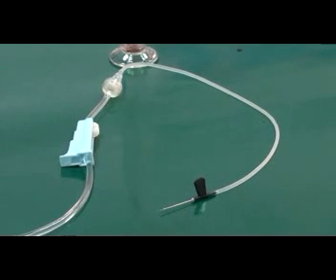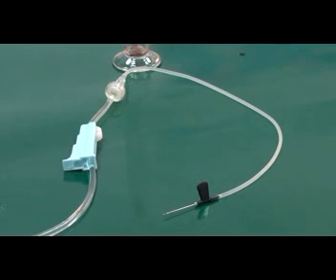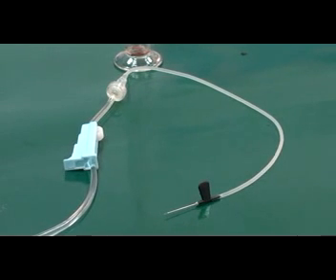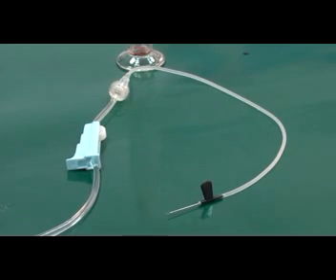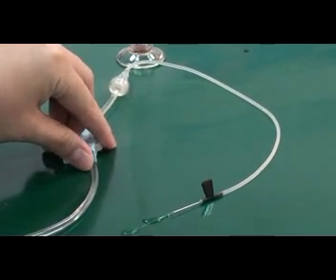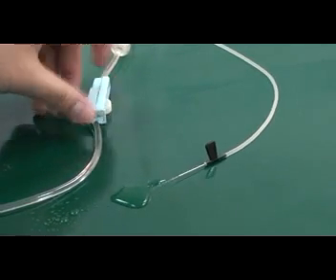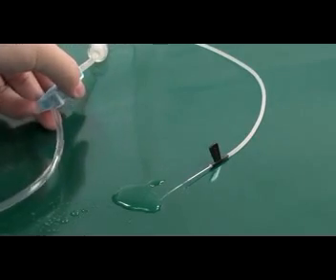Before you start, please prepare the new brand IV set and a metal cup, making sure no air is leaving inside the IV set. Now there is no air leaving inside the IV set.